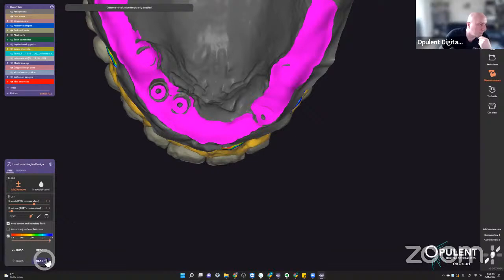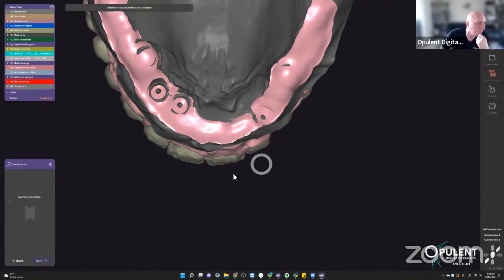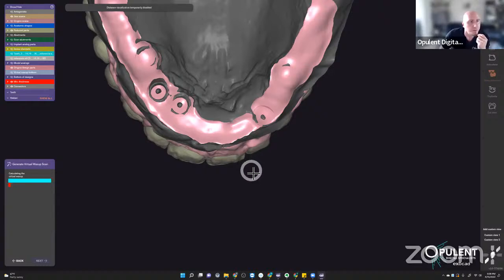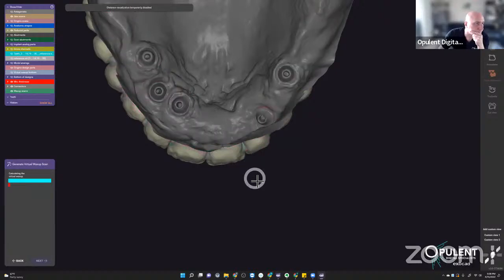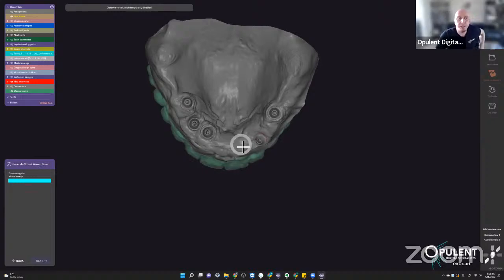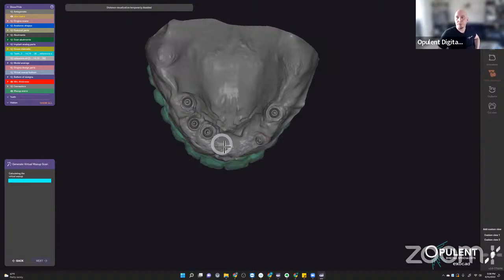Getting the scan data back in, you basically want to create at least a little bit of pressure on the ridge — I do that by eye. There has to be some pressure on the soft tissue. Around the implant connections, there's a bit of a dirt trap, so try to reduce the flange. But you can only reduce it so much because that's where the implant is and you need minimum thickness so it doesn't break. Small footprint, but don't wrap around the ridge.